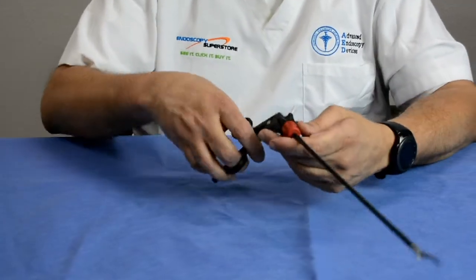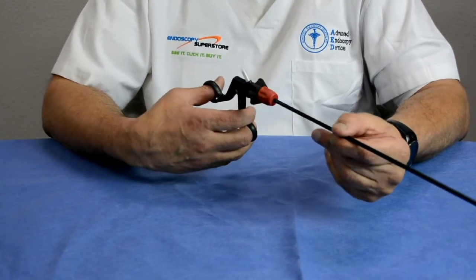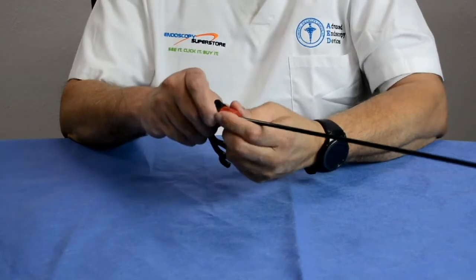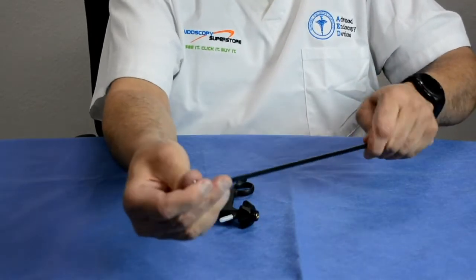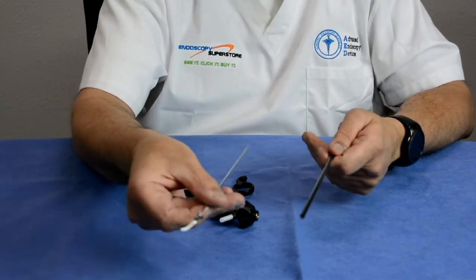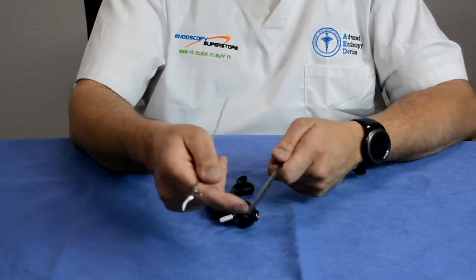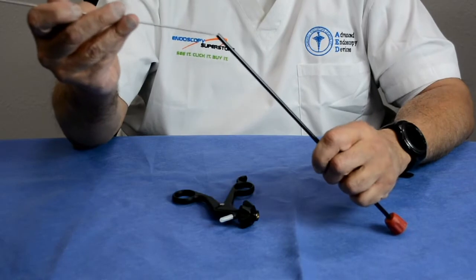Now we've come to the third generation of laparoscopic forceps — the Precise line from Endoscopy Superstore. The Precise line is a modular style forcep using a polycarbonate handle that is fully rotatable. What's unique is that you can disconnect it, open the shaft, and the jaw insert comes out. There are about 50 different jaw patterns to choose from. You can pick your diameter shaft — these come in five millimeter and ten millimeter — and in two different lengths, suitable for standard or bariatric patients.